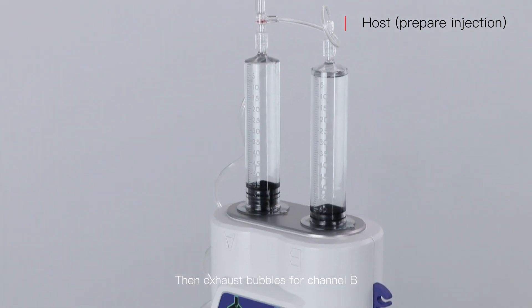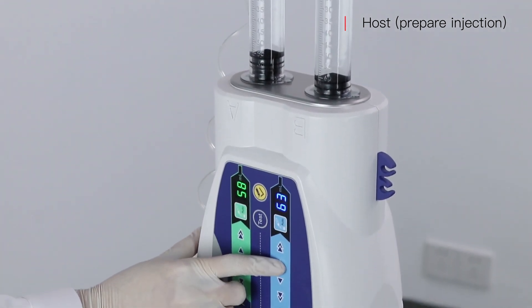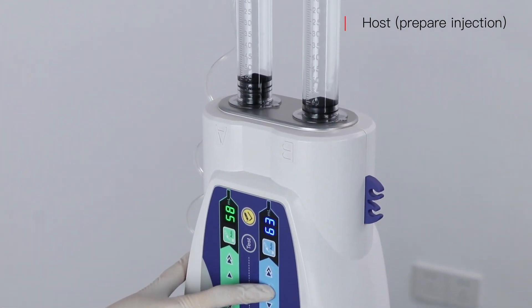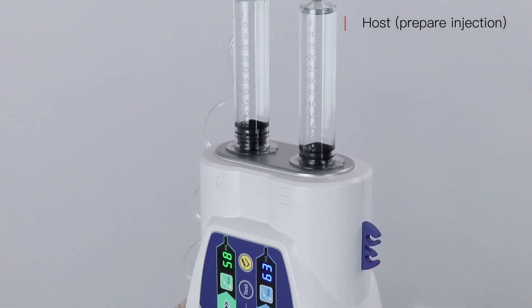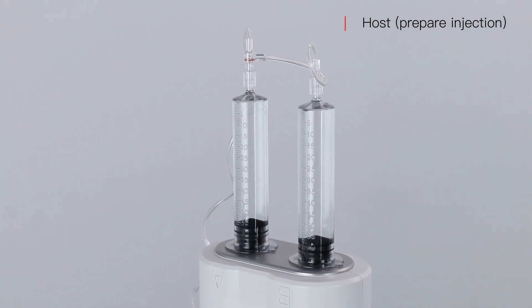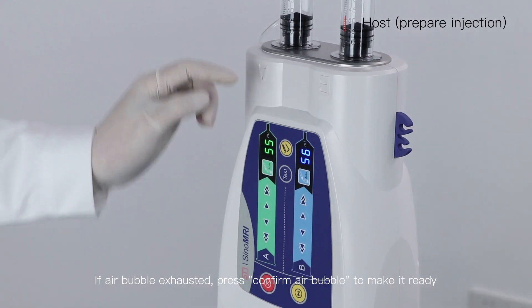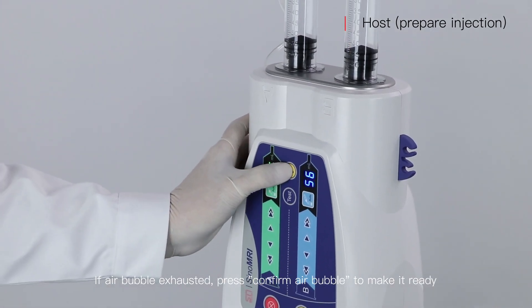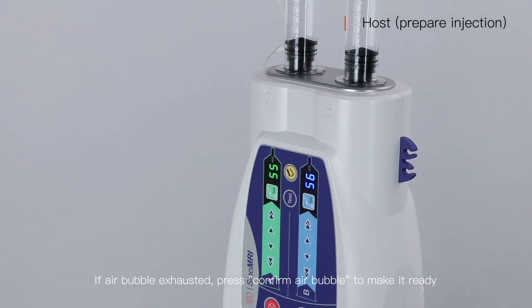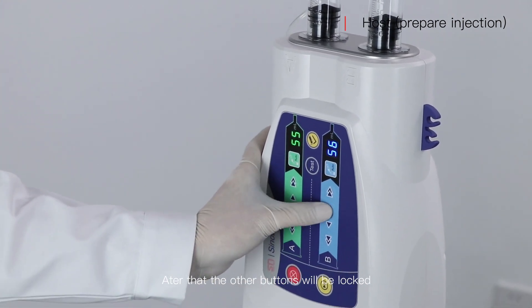Then exhaust bubbles for channel B. If air bubbles are exhausted, press confirm air bubble to make it ready. After that, the other buttons will be locked.